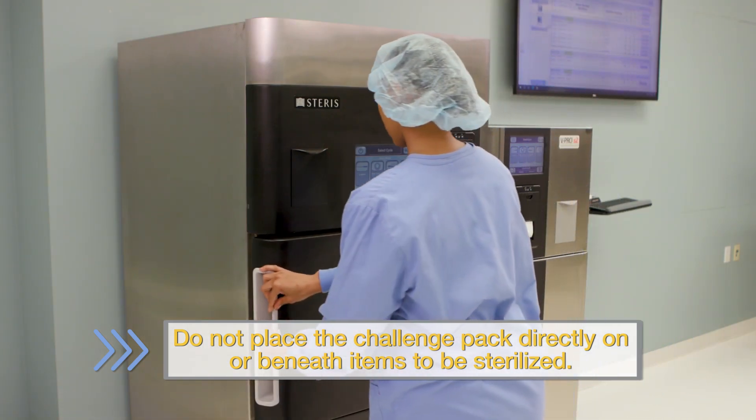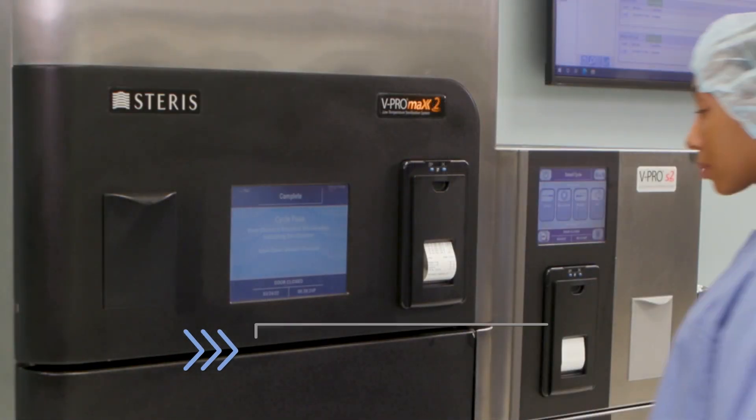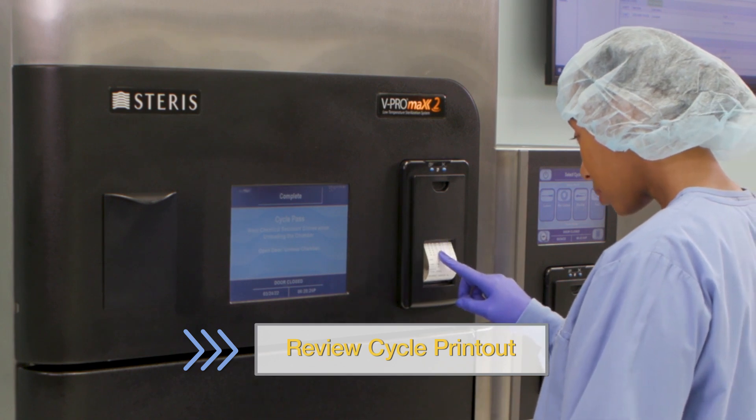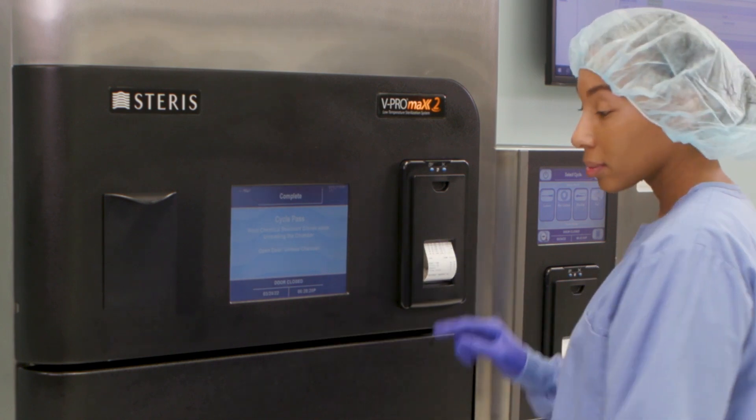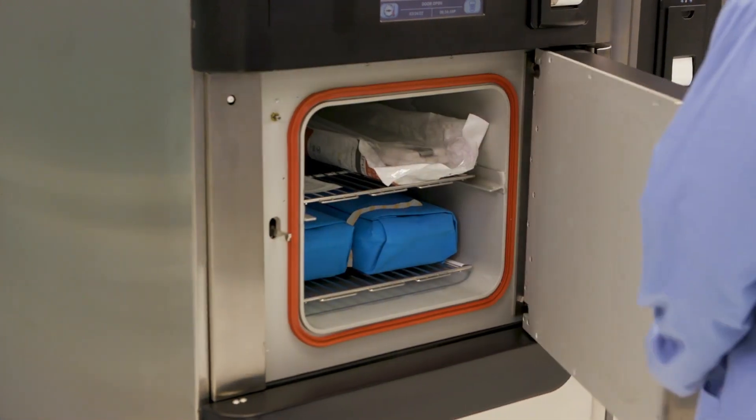Load the sterilizer following the sterilizer's instructions for use. Upon cycle completion, review the cycle printout to confirm all parameters were met. If all parameters were met, use gloves and remove the test pack.